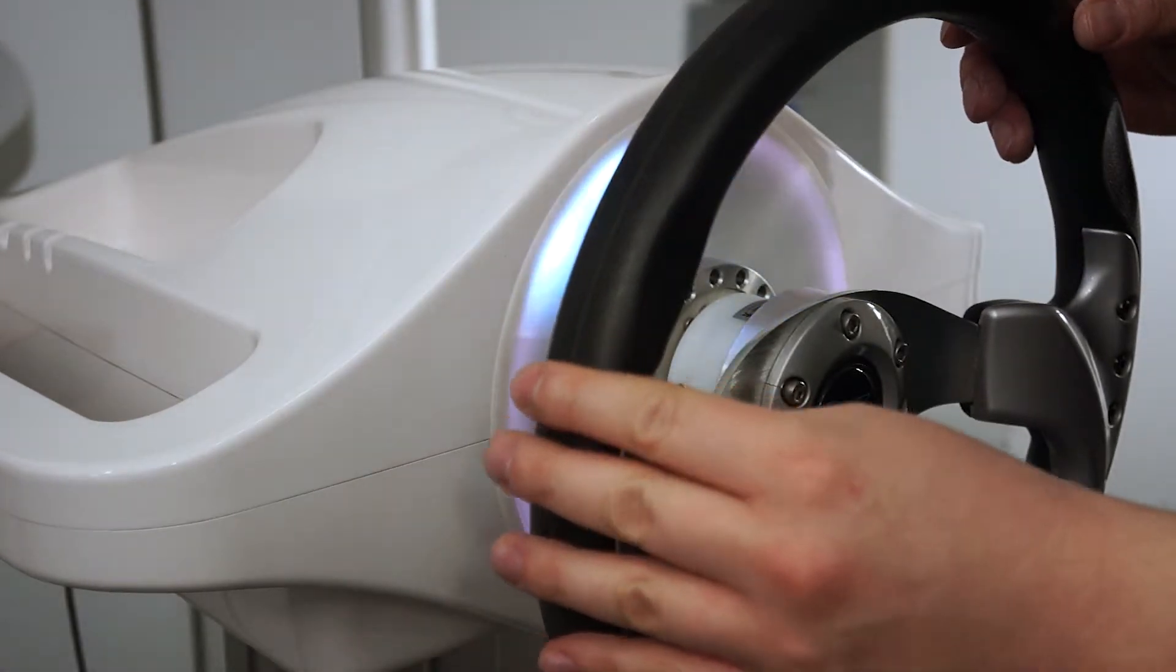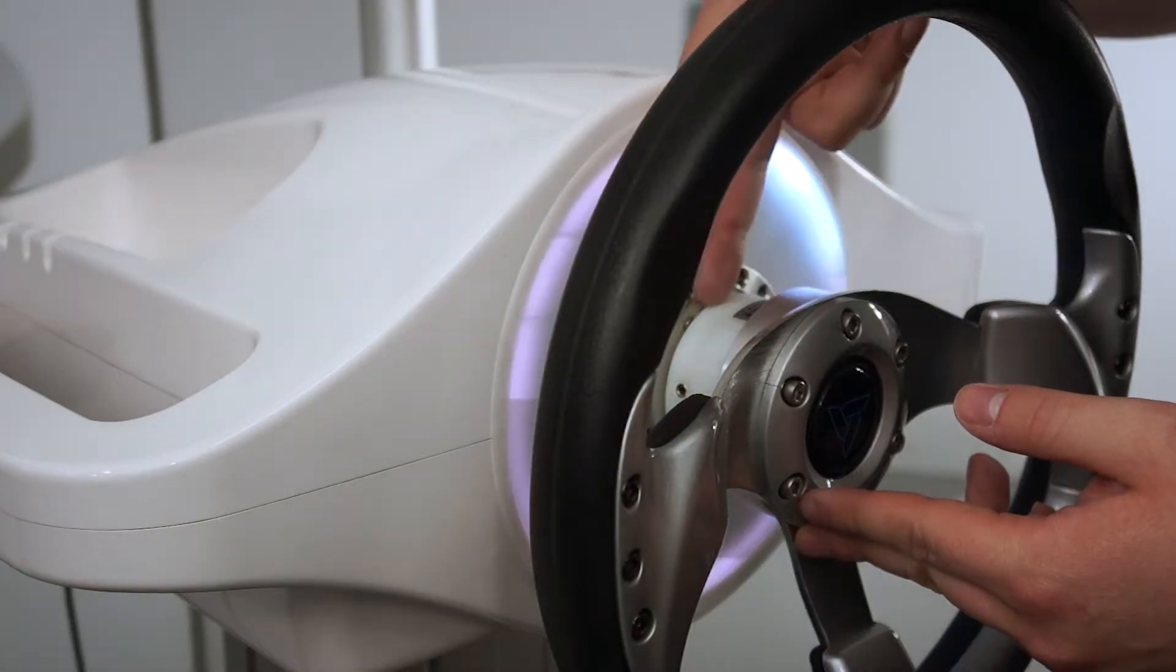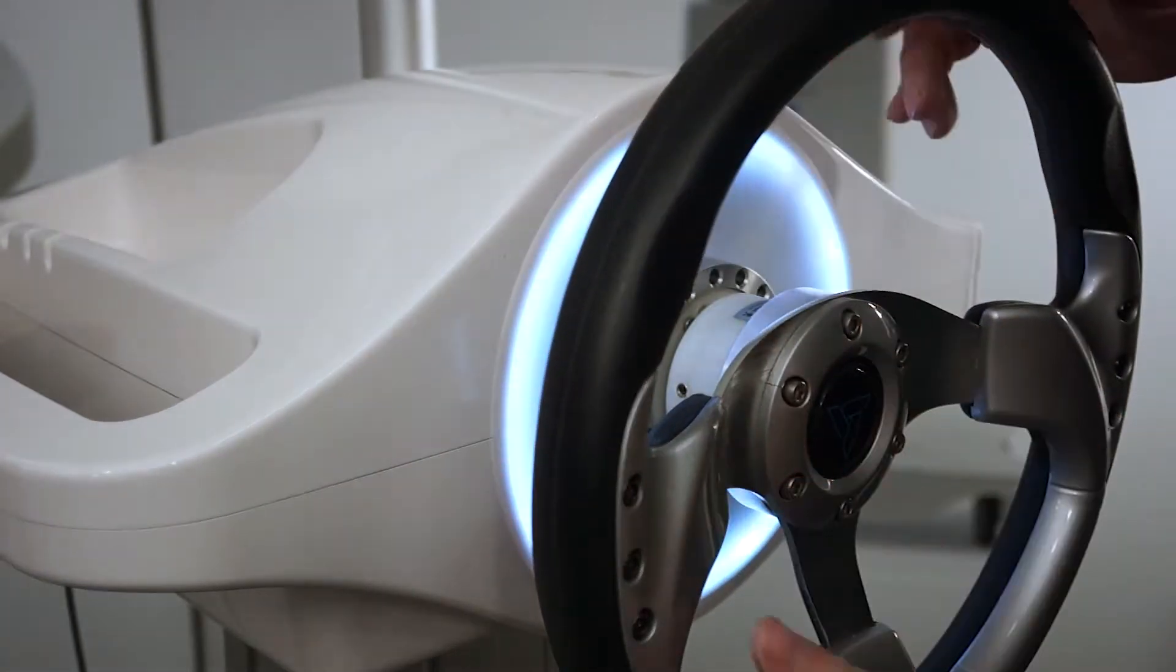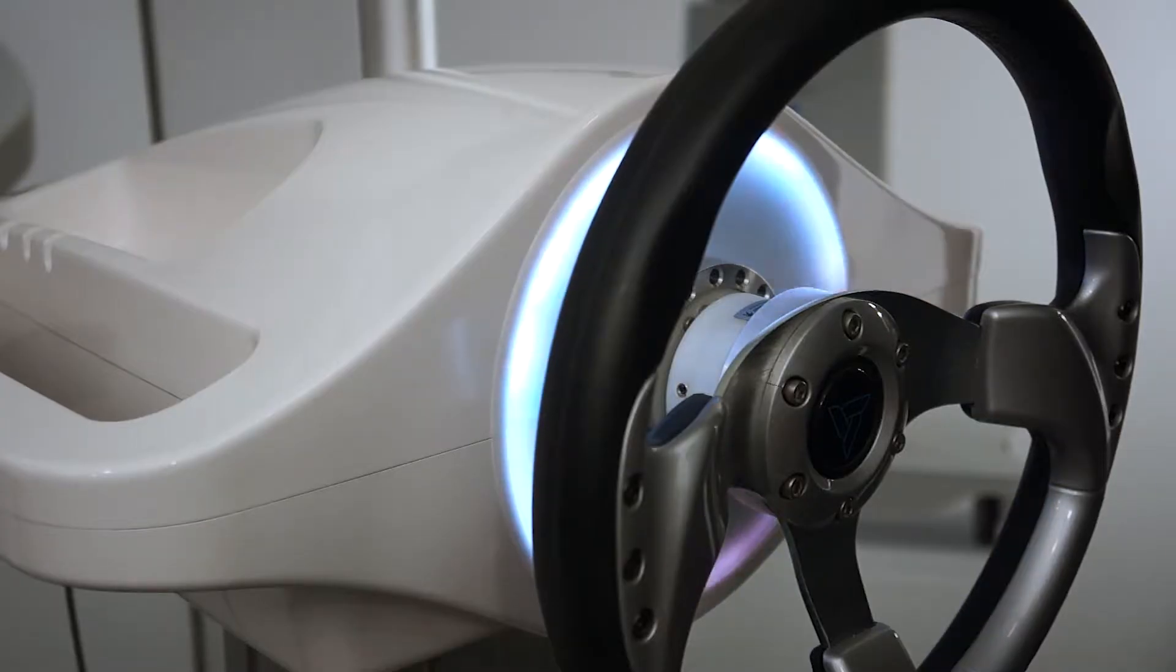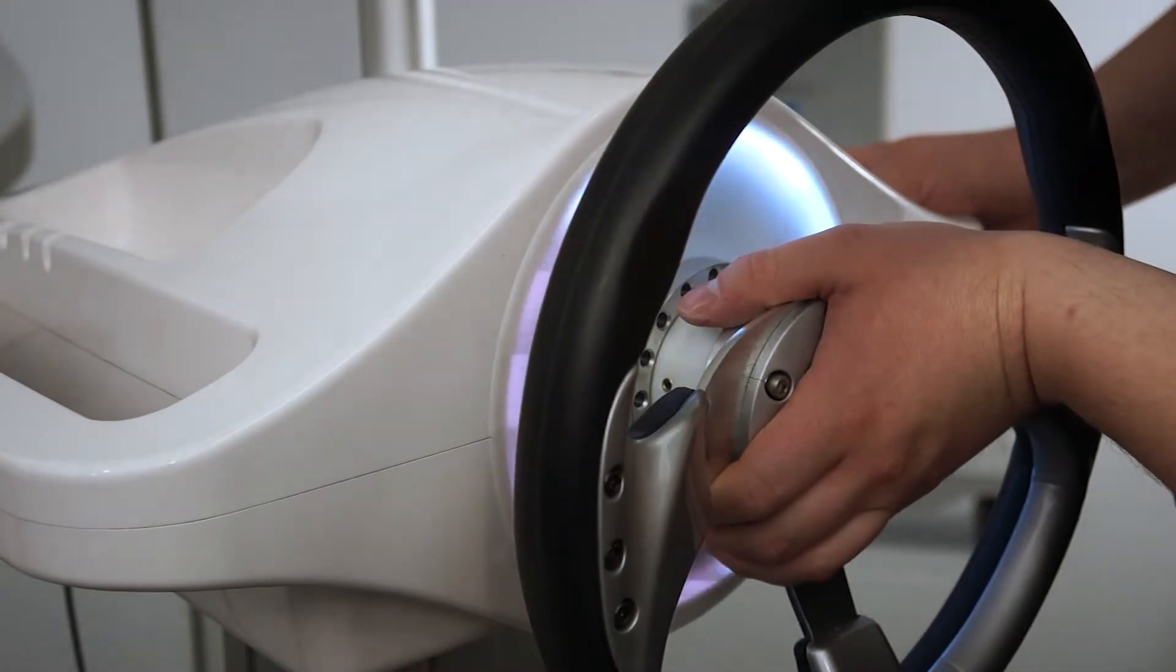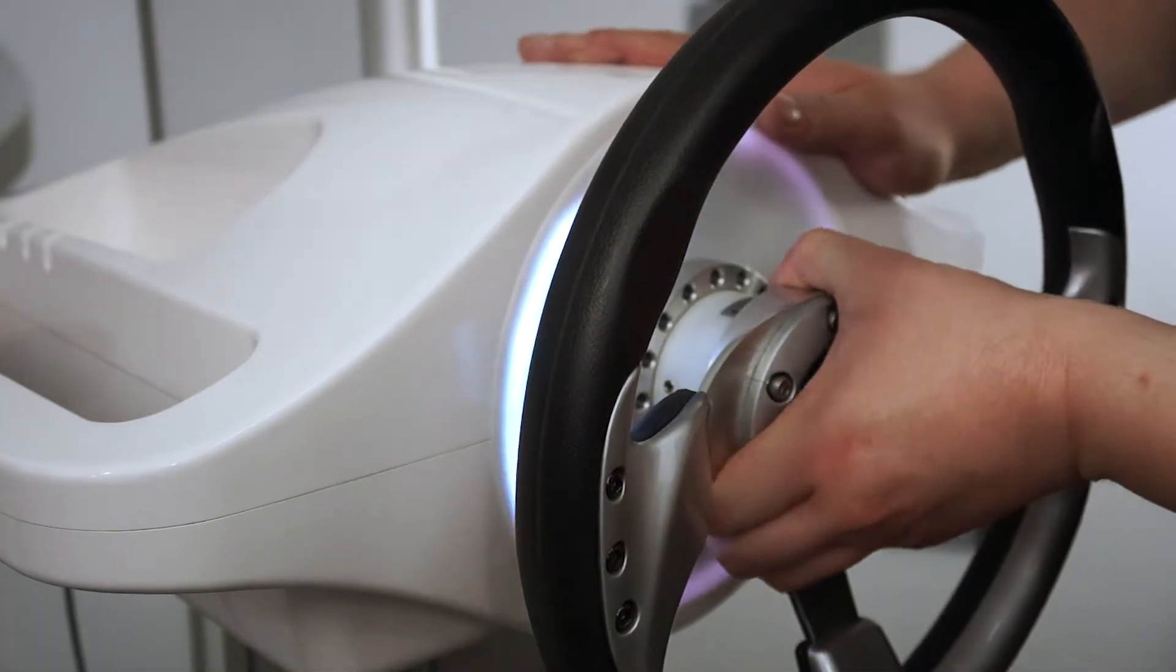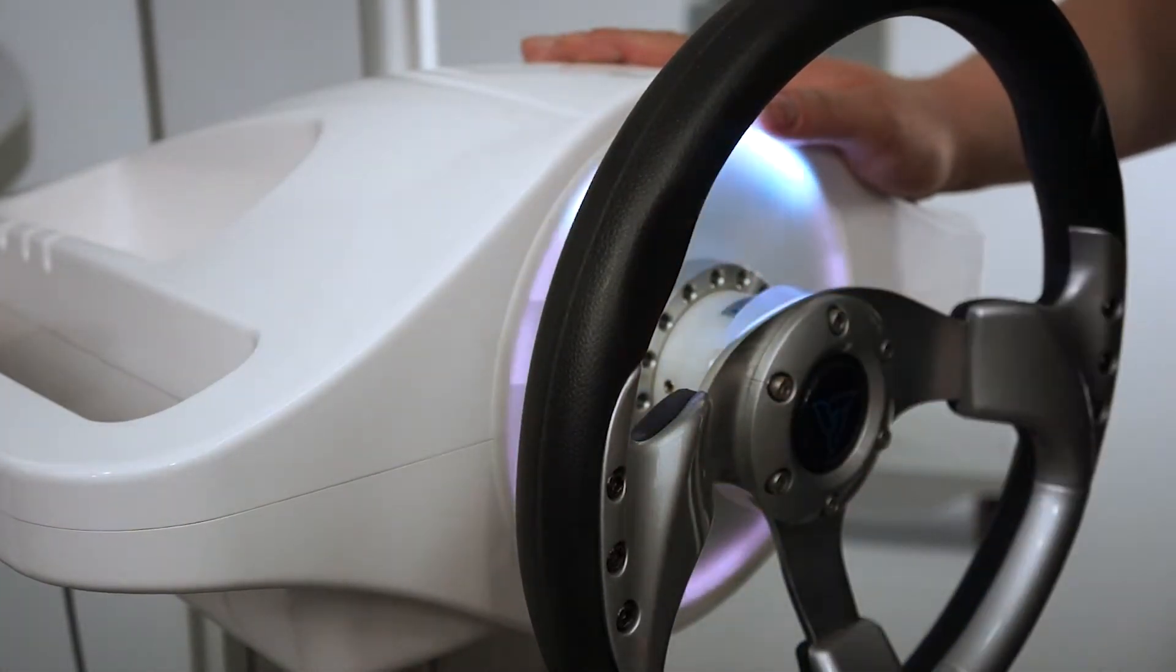In this position, this is the second step of putting the extension in, but it hasn't reached the connectors yet and it's not fully snapped with the electromagnet. I can actually pull it out or push it in - you just cannot rotate it either way. The third step, when you have the extension aligned, is to actually push the extension in until it reaches the electromagnet and the icon in the software will start to shine. In this position, you cannot rip the extension out of Luna because it's already connected by the electromagnet.